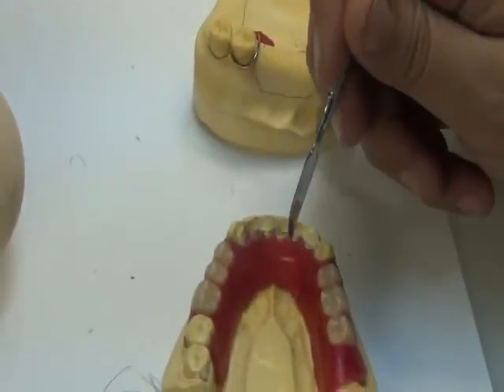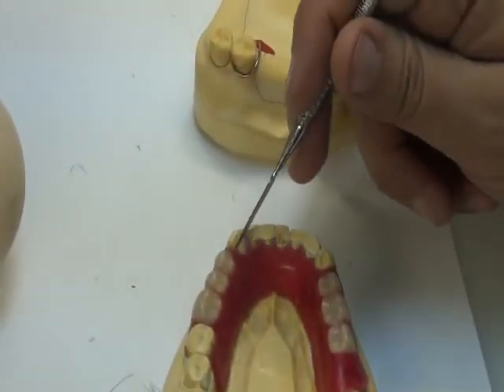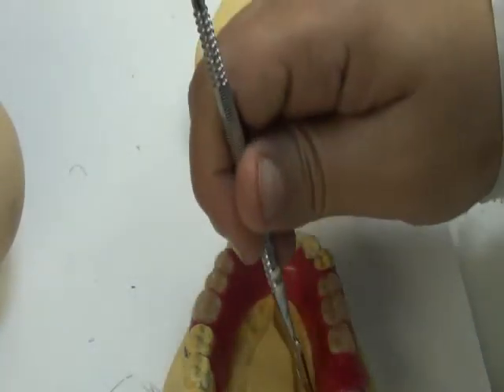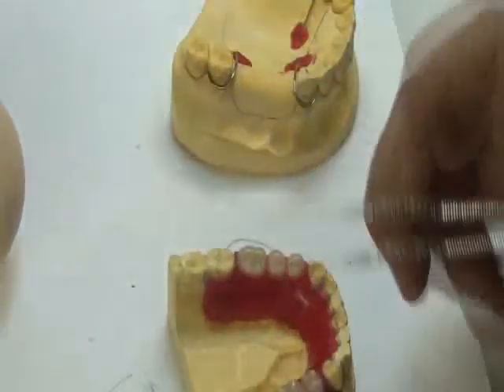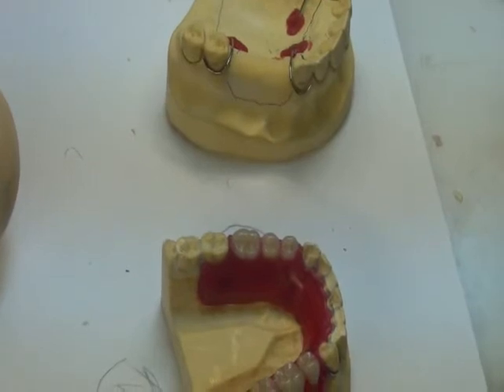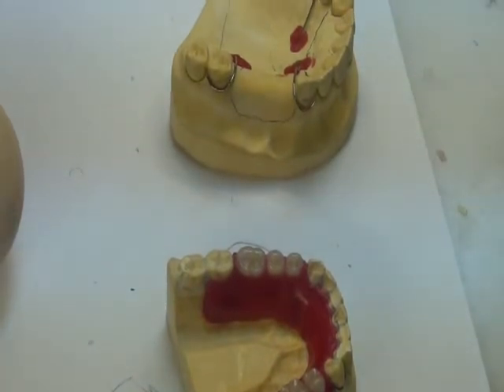So, over the cingulum of the lower teeth, we come down vertically, and on the free end saddle we fully extend it as much as possible around the borders. Okay? So this is the wax. These are the features that you should follow when you do these steps. Now we're going to do a quick overview of the steps. To begin the procedure, we will do it in the next lab.